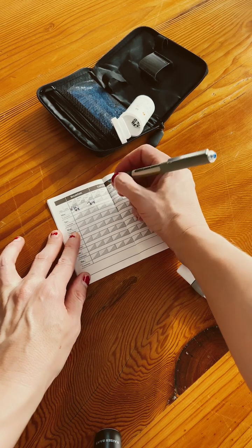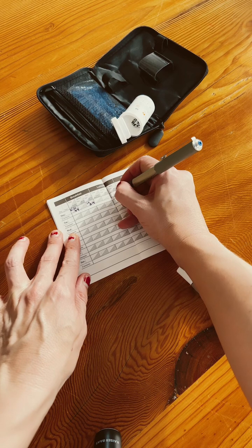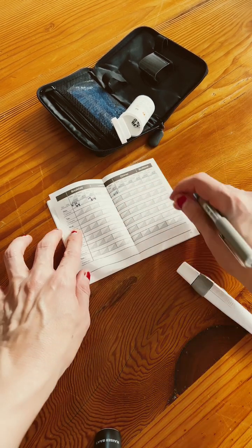So this was after a meal, so we write this down — 6.5. So this is what you do.